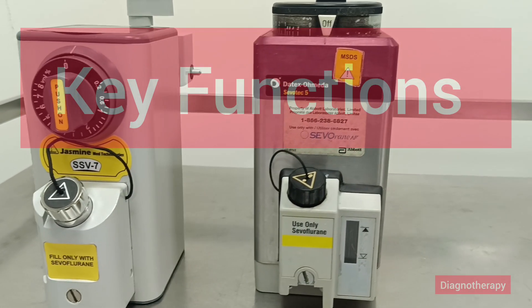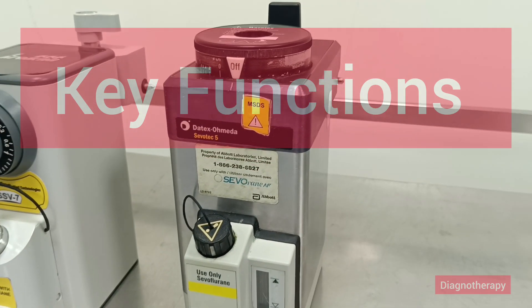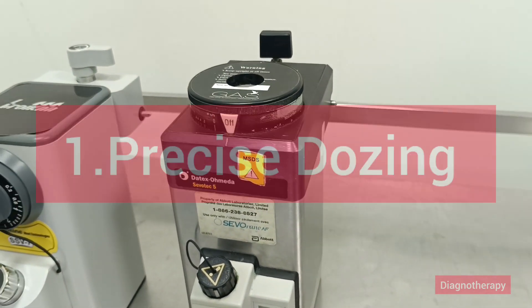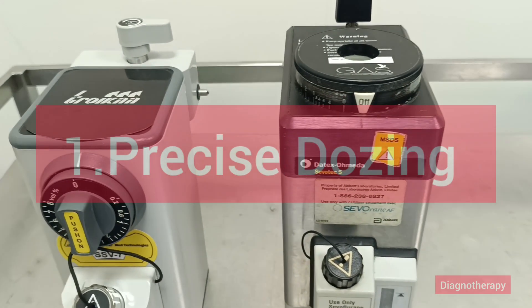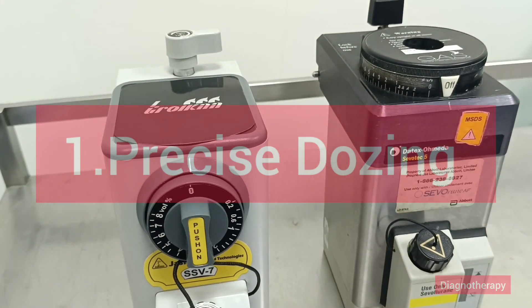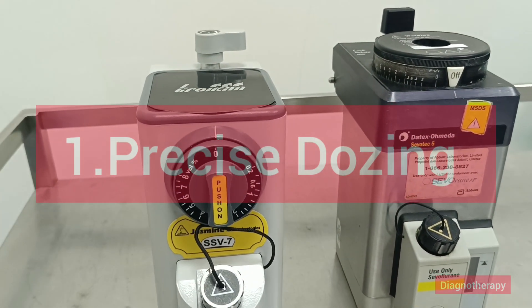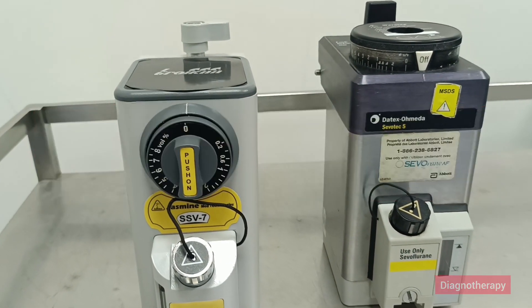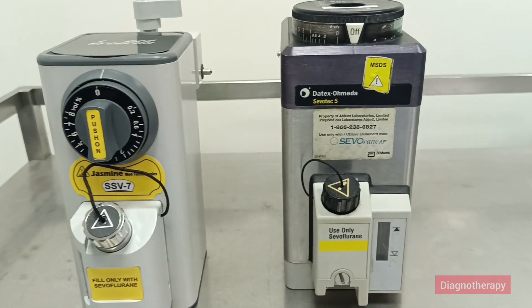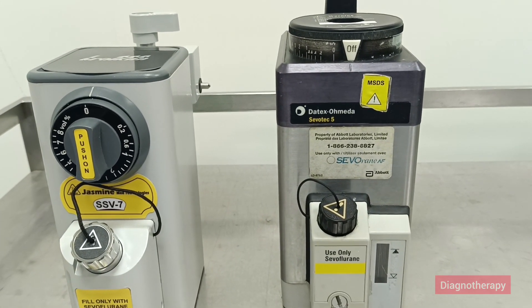The key functions of an anesthesia vaporizer: first, precise dosing. Vaporizers are calibrated to ensure that the concentration of anesthetic gases delivered to the patient is accurate and safe. This is crucial because even slight variation in dosing can impact the depth of anesthesia.